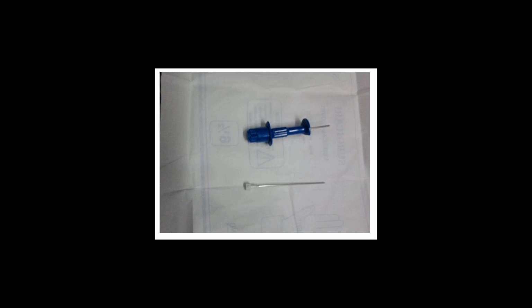This is an aspirate needle that is used nowadays. It's a disposable one, the modified Salah needle. Most of us would probably be using the reusable one that we were using earlier. The important thing is that it has a lock, or guard, and this prevents the needle from going too deep.